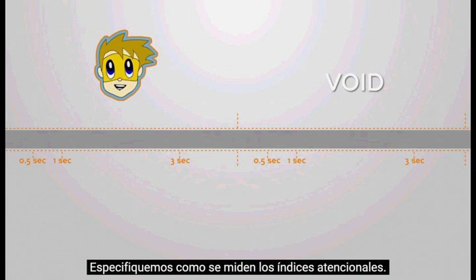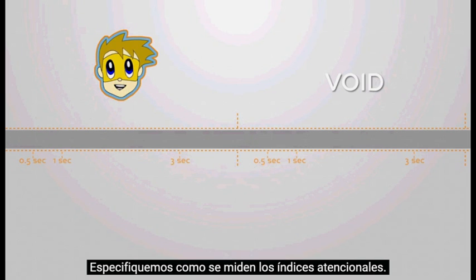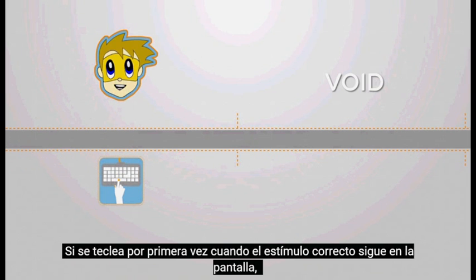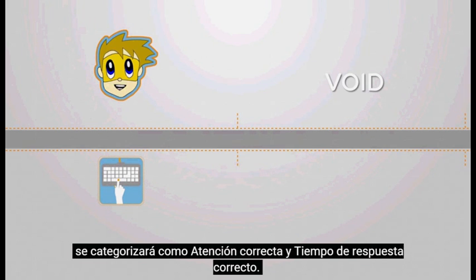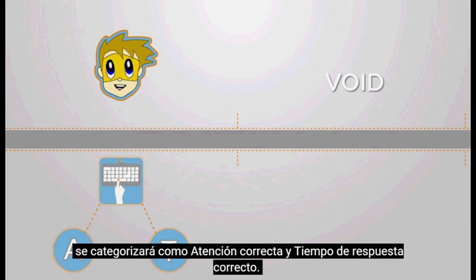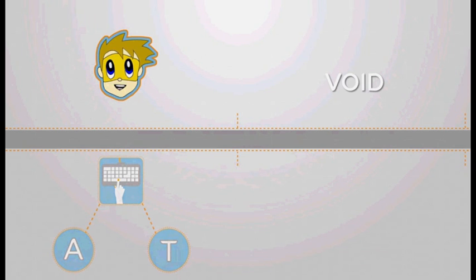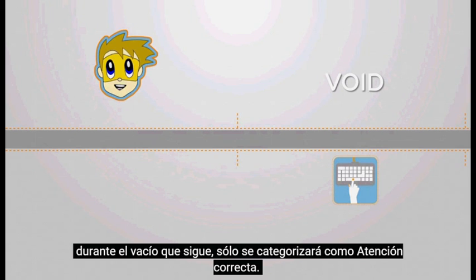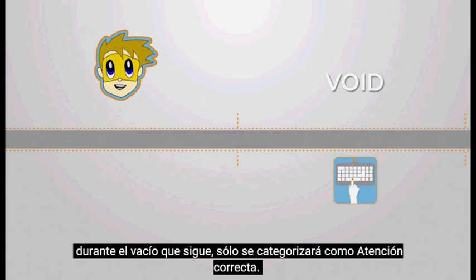Let's specify how the attentive indices are measured. If a first keystroke is performed while the target element is still on the screen, it will be categorized as correct attention and correct timing. When a first keystroke is performed after the target element disappears, during the void that follows, it will be categorized as only correct attention.